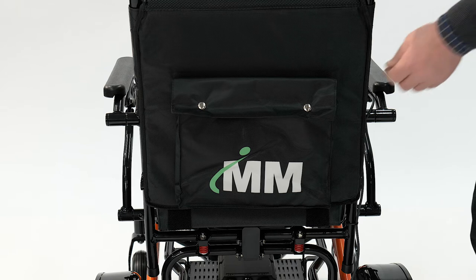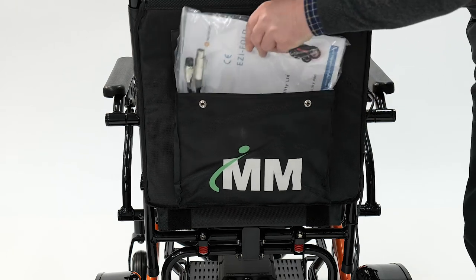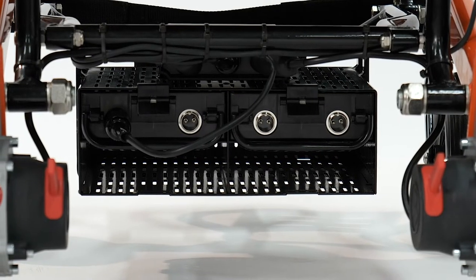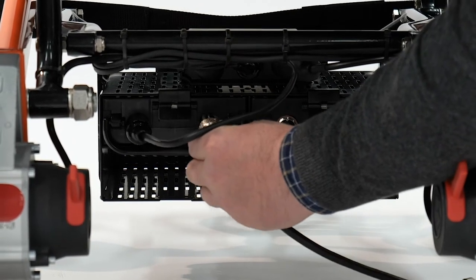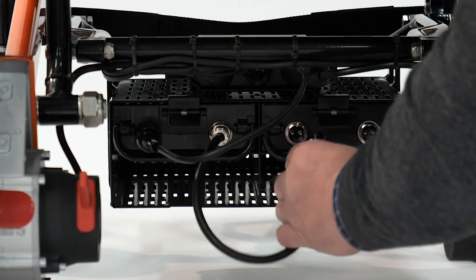At the back of the power chair you will find a pocket in which is the instruction manual and the connection leads. Your batteries can be connected together using the lead provided, like so. Your battery will need to be charged for 24 hours prior to use.